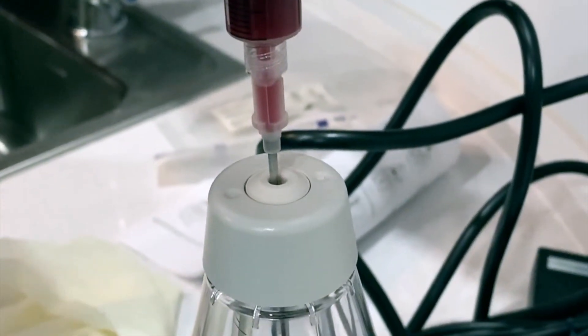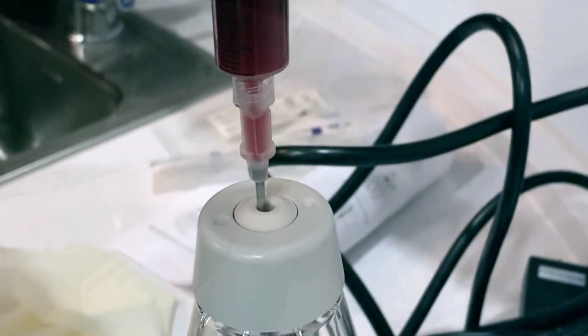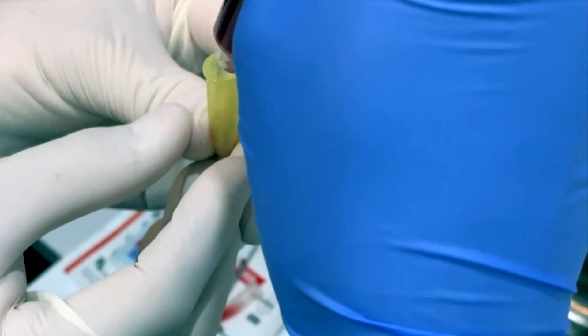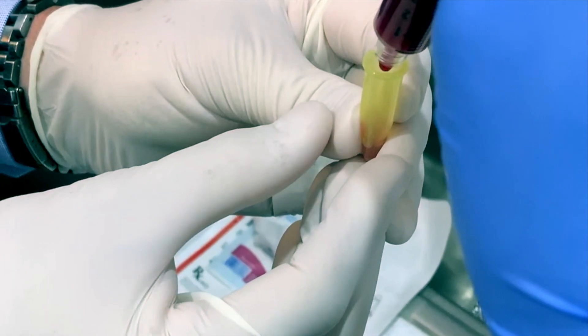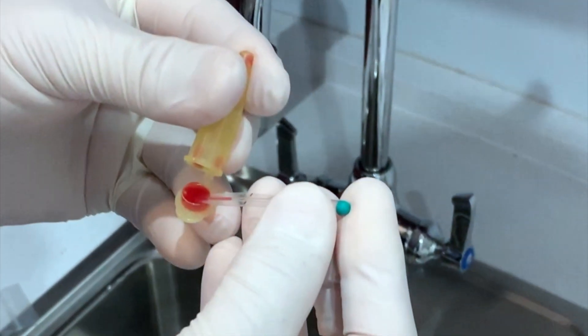We are removing PRP from the Genius system now and adding it to a reagent. It stays in this container for approximately five minutes and then is reloaded for counting.